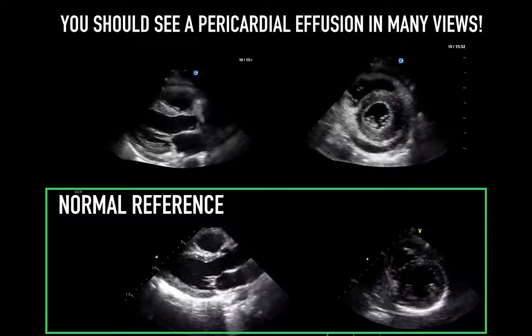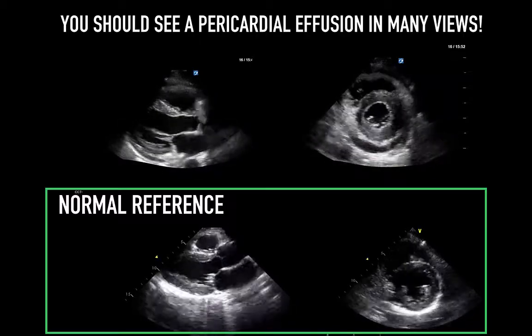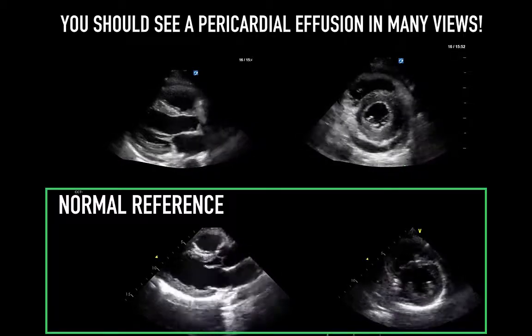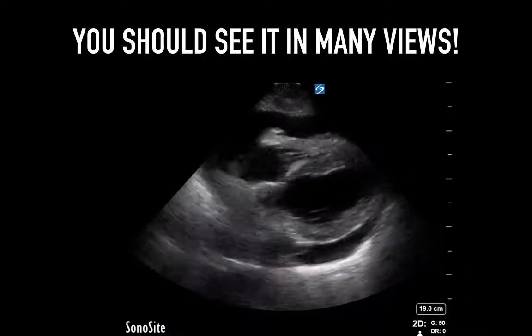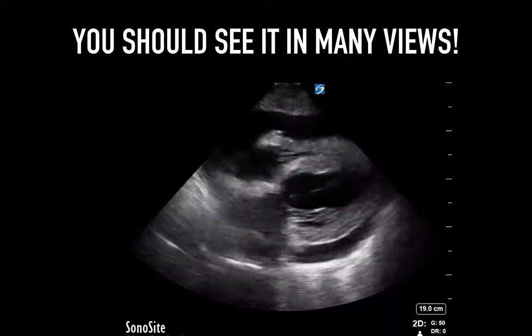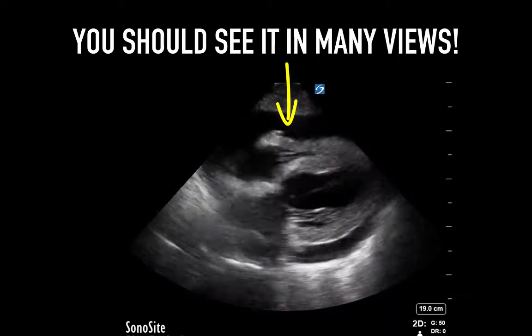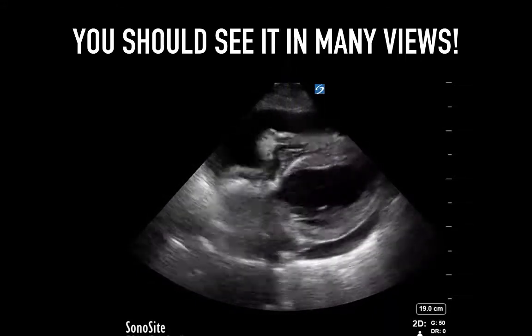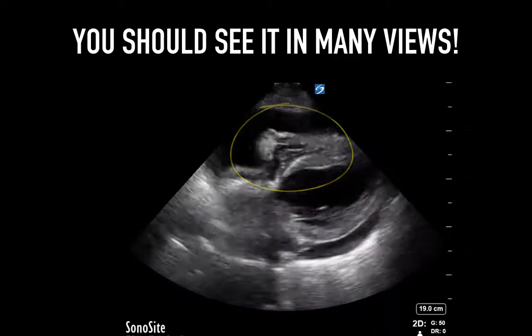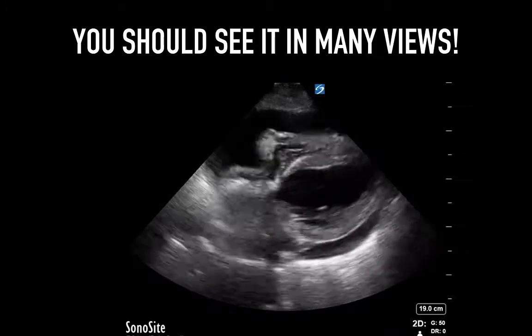The best place to look is the area interfaced between the two tissues. The parasternal long axis or short axis are good windows because both anterior and posterior effusions can be seen, but really lack the diagnostic ability to assess for tamponade physiology as the right atrium is not seen. The subcostal view is likely the best view to assess for pericardial effusion because the RV and liver tissue interface accentuate the findings of the anechoic space. It is also the best view to assess for tamponade physiology as it usually shows both the RA and the RV quite well. Apical views are usually not as favored because rib shadows can lead to under-appreciation of the effusion size, particularly lateral to the left ventricle.